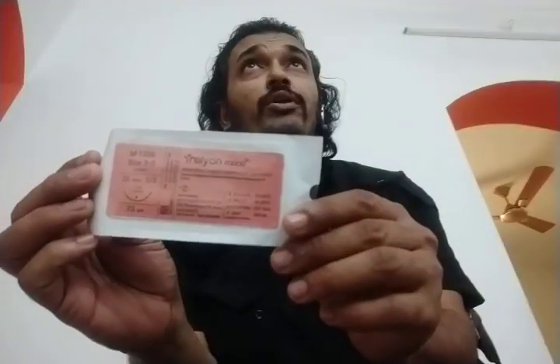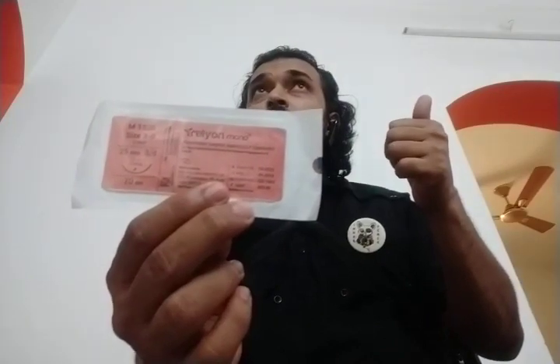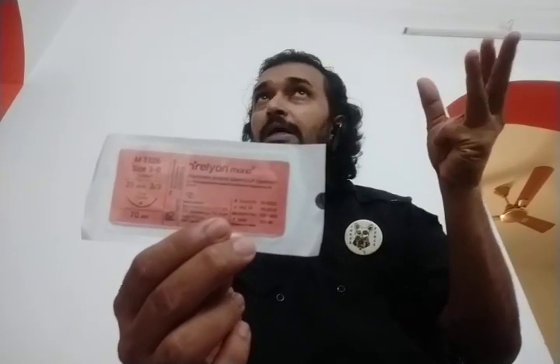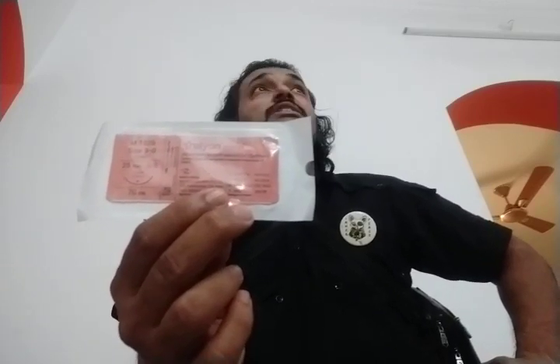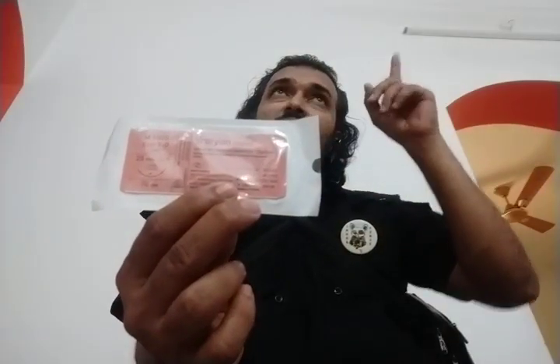Now let's look at the intermediate-acting suture materials. There are three agents: polyglycaprone 25 (Monocryl), glycomer 631 (Biosyn), and polyglytone 621 (Caprosyn). Monocryl is a non-braided monofilament; it doesn't support capillary action or bacteria and won't cause reaction. However, 50% of the tensile strength of Monocryl is lost in around one week, 70 to 80% is lost in around two weeks, but total absorption under ideal conditions is 90 to 120 days.